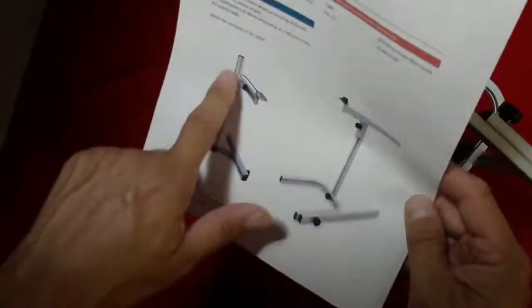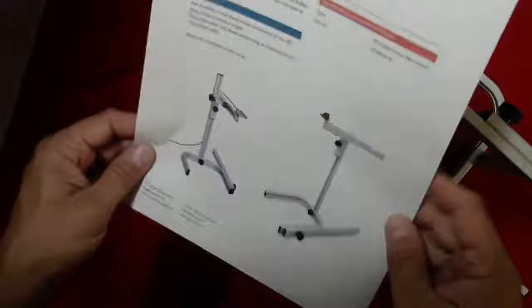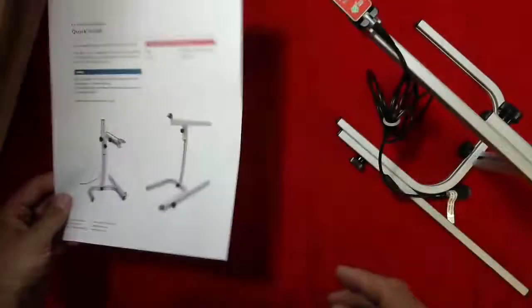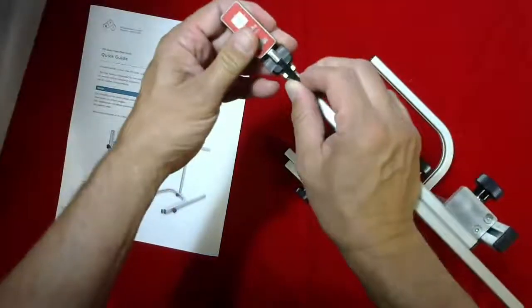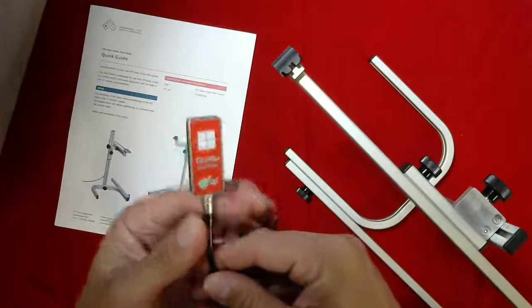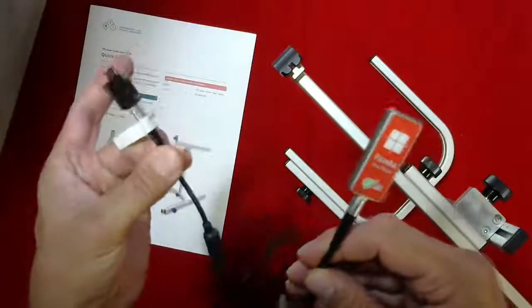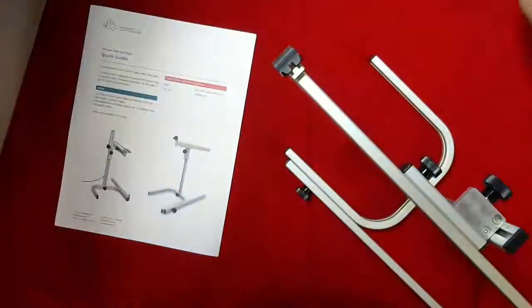It's a special holder designed to hold the dose probe. This is an instruction sheet that comes with it, a quick guide. It doesn't come with the actual detector - this is part of your piranha kit. It's a dose probe that gets plugged into the piranha meter, but for demonstration purposes I wanted to include this to show.